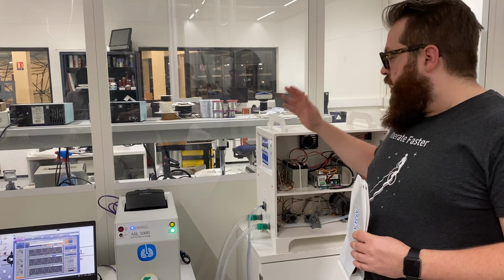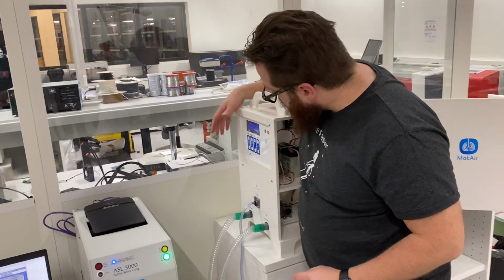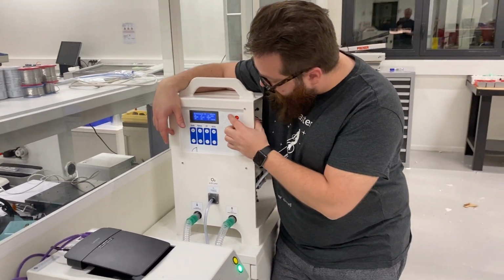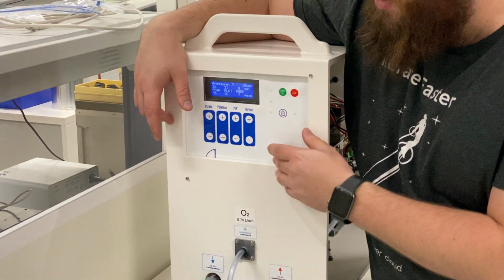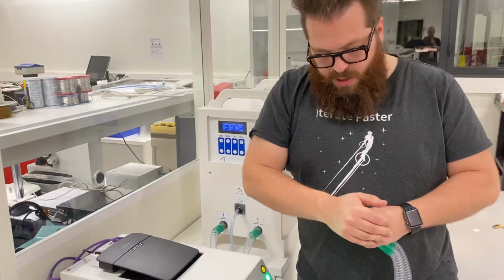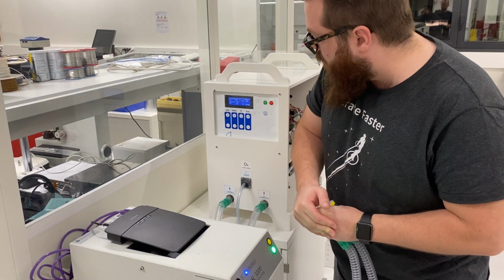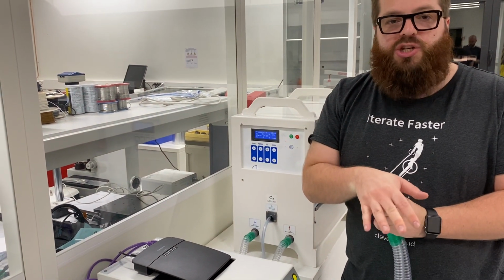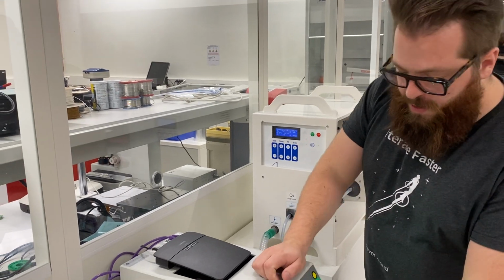So the UI of the MakAir here is simple for the people managing it. Basically there is a start and stop button here, and a way to cut an alarm, because there are many alarms. For example, if I take the pipe here and I put this, as you can see, there is a problem, and it will say there is a high priority problem, because this could mean that the patient is dying. So this is a problem, and we need to alert people.